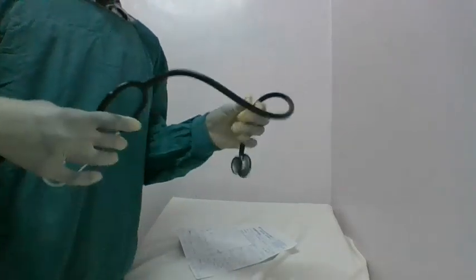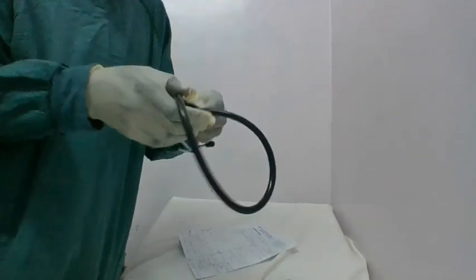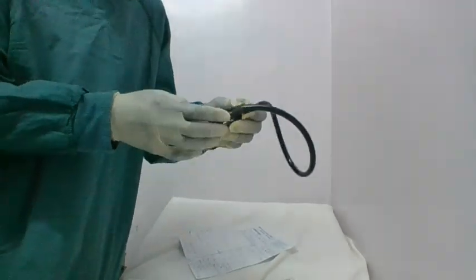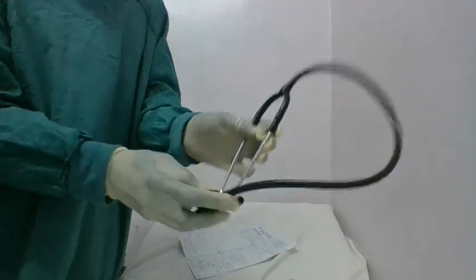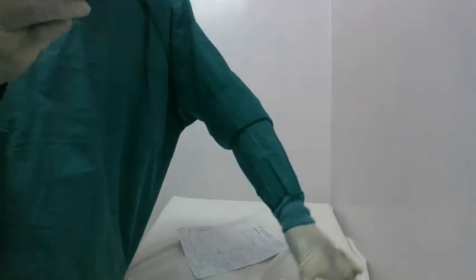So the stethoscope, basically, is also included. I know mostly nurses here in Kenya, or in our locality, we don't include a stethoscope in our vitals taking. Because I know, guys, we find it like, oh, maybe it belongs to the medical officers or the clinician. But guys, remember to have your stethoscope on the tray containing your vital taking instruments.